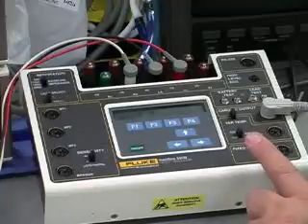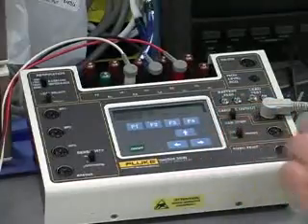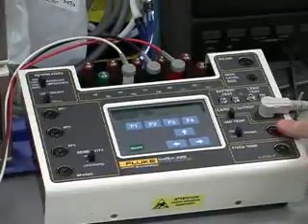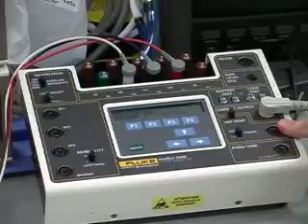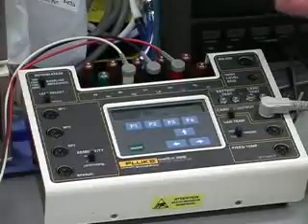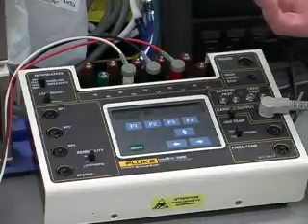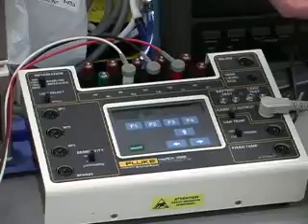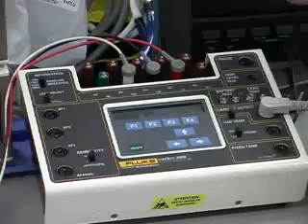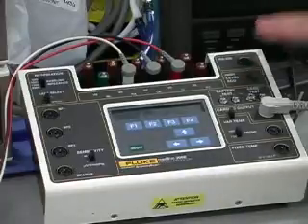So a lot of monitors have the ability to measure the differential between 2 temperature channels. So you can do that with this setup. You've got a normal of 37, and then you can go in and adjust this one. In a lot of cases, if they're monitoring the site from a transplant or maybe a reattached arm or something like that, they'll monitor the main body and then the temperature of the peripheral limb, and they can set it so that if the temperature differential between those two is high, it says, hey, you've got some problems here. Got that capability.